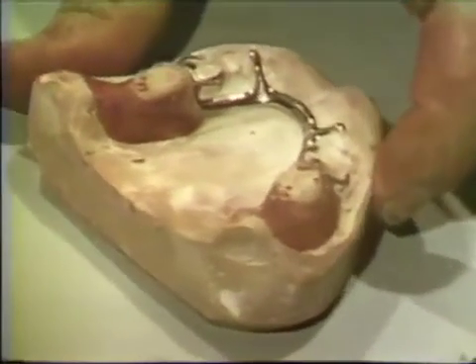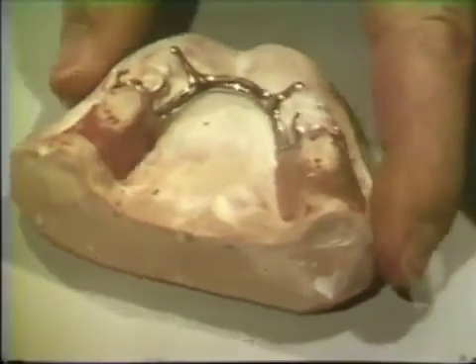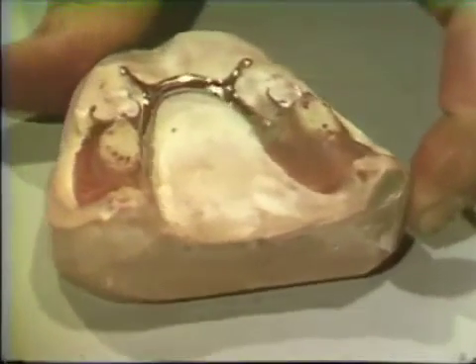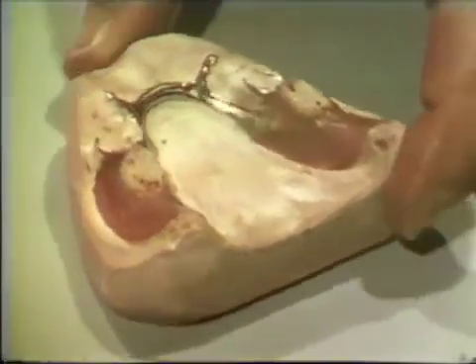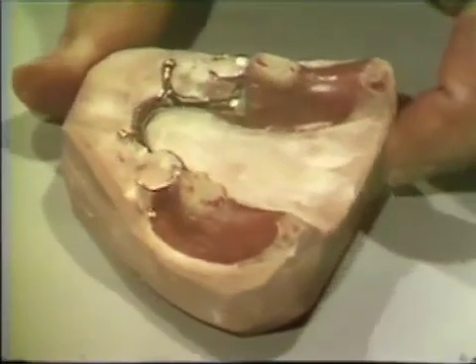The saddles are given the desired buccal and lingual anatomy, properly smoothed, and finally invested, flasked, and processed.